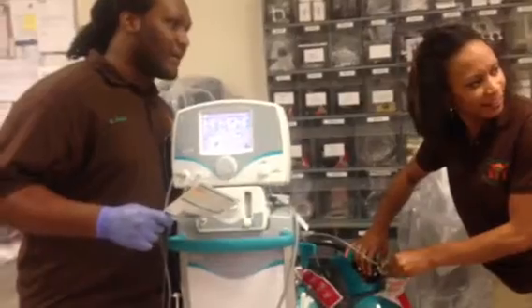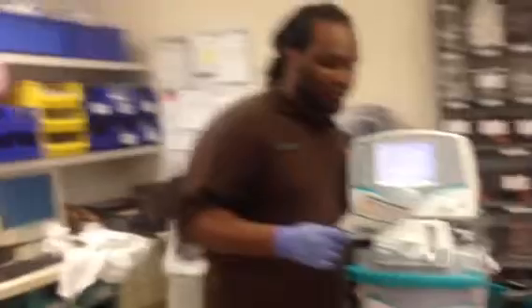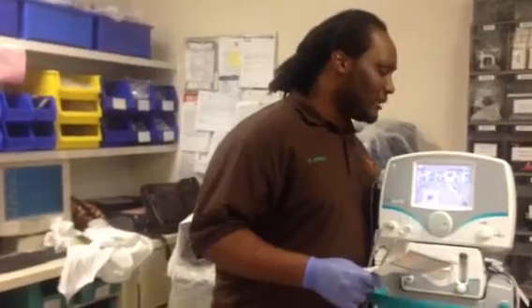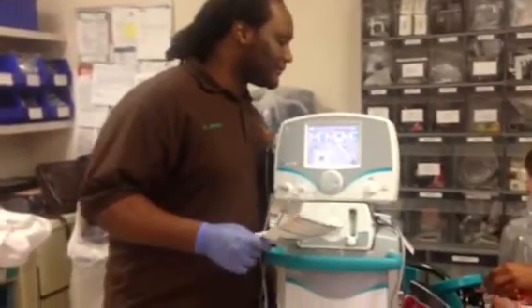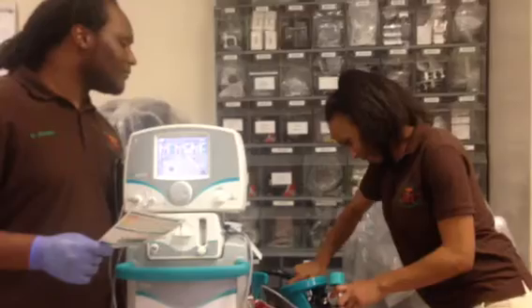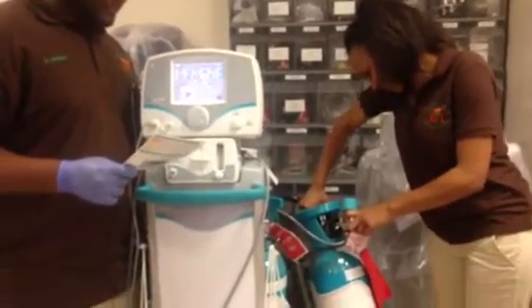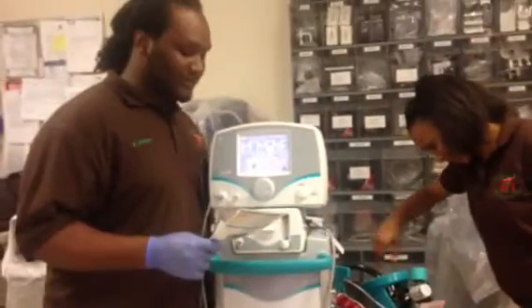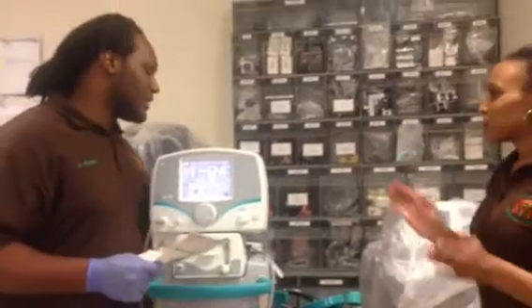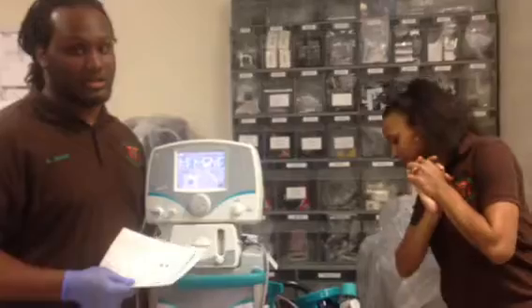Now, after we actually have the high-pressure regulator connected, we are next going to crack the actual tank and do a quick pressure leak test. Now that she has the tank cracked, we're checking to see what the pressure actually went up to and checking to make sure it actually holds that pressure for a duration of 30 seconds.